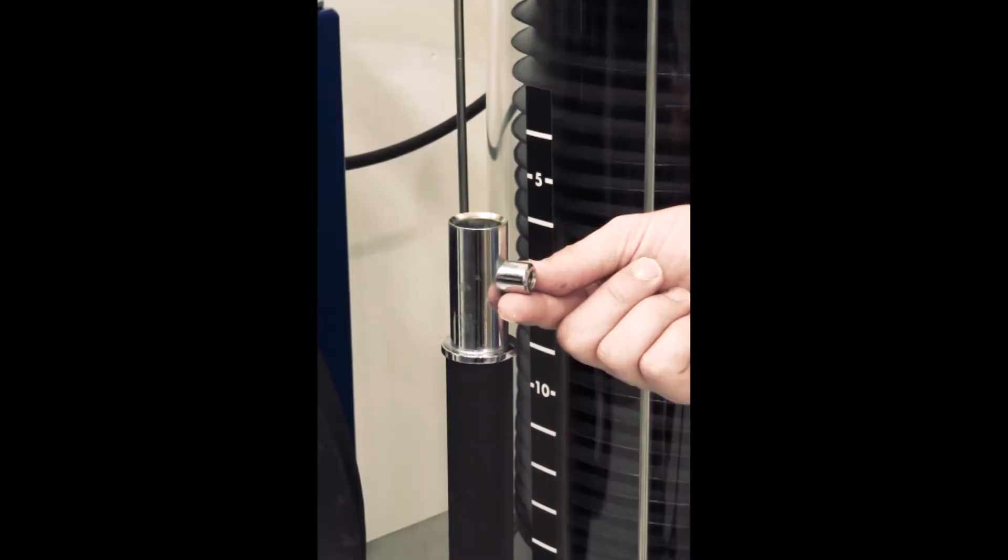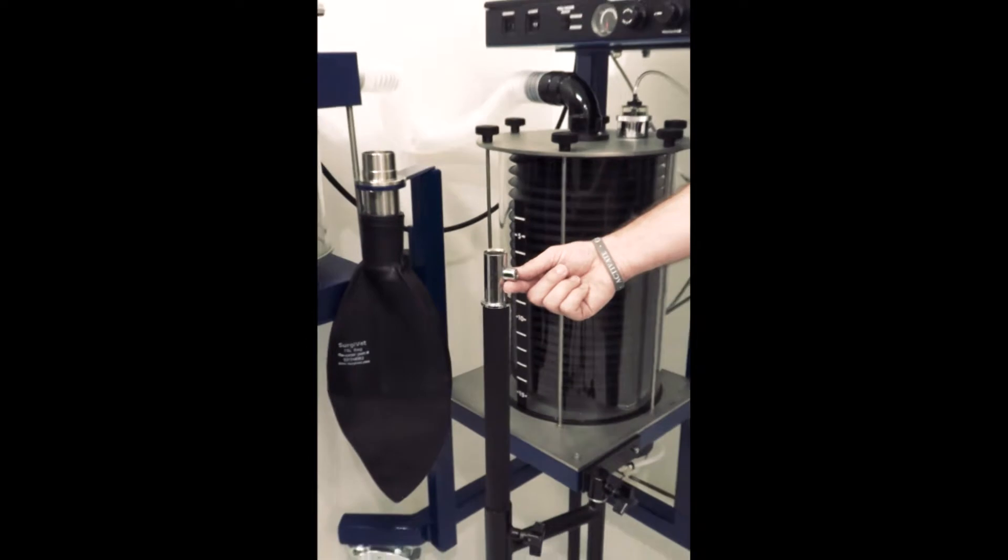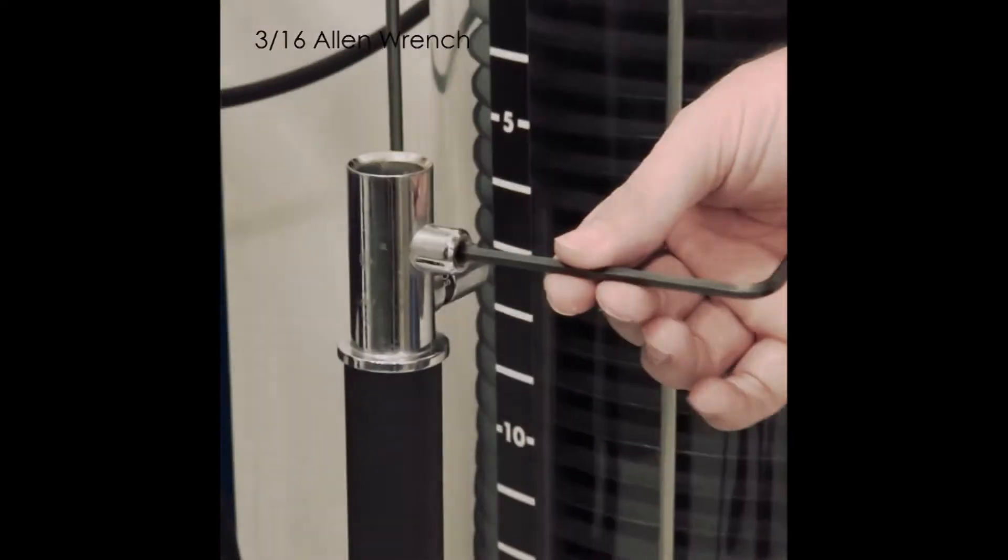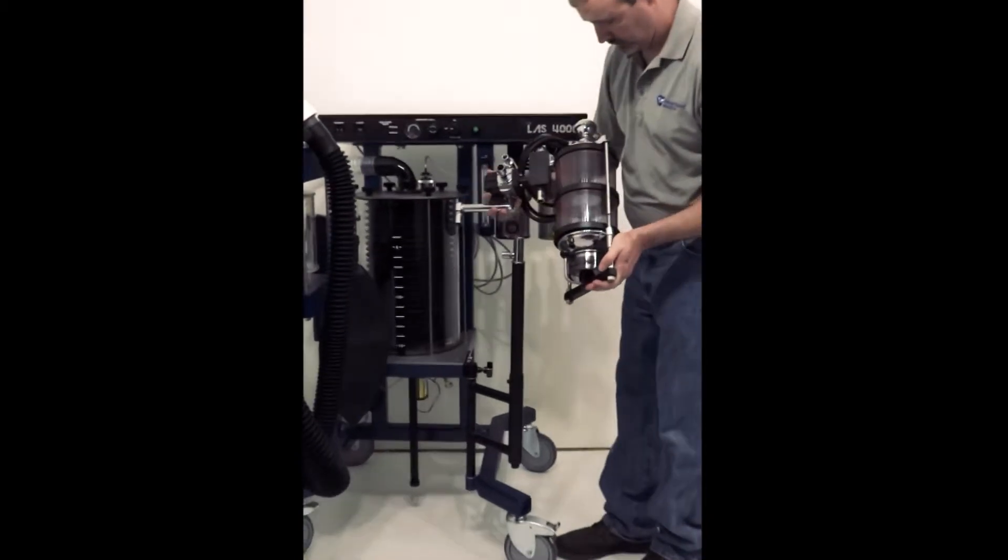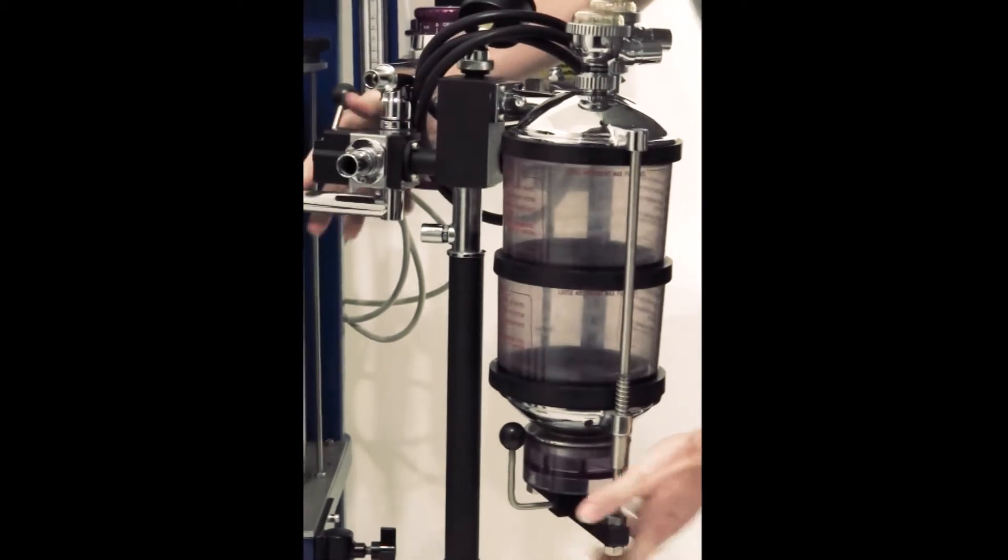The remainder of this video is for those of you who have elected to purchase the full absorber. Use a 3/16th Allen wrench to secure the full absorber to the swinging limb pin system. The full absorber mounts onto the pin system as shown on the right portion of the machine limb.